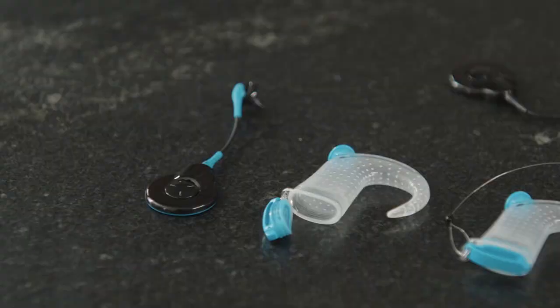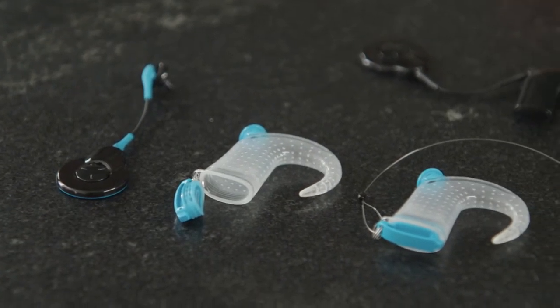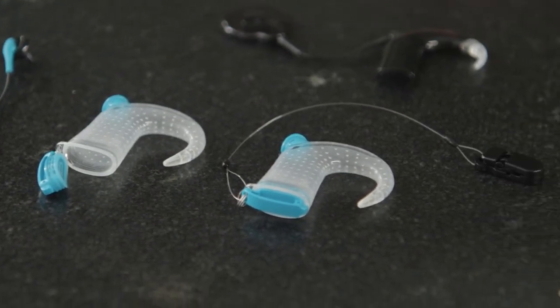So that you can continue to hear while swimming in a lake, ocean, or pool. The Aqua Plus is designed for use up to 50 times. In your kit, you will have two sleeves.